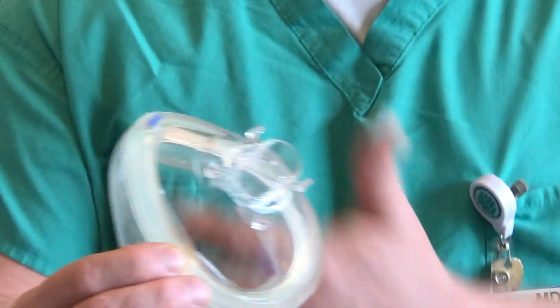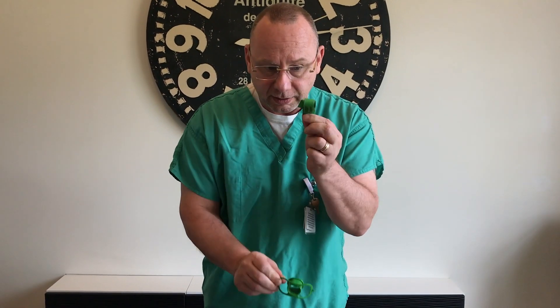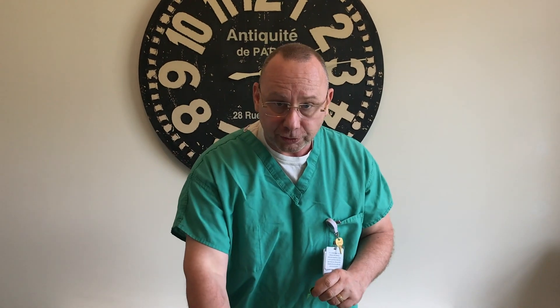The good news is you don't have to make anything. It's already pre-fitted to do everything that you need. How do you hold it to your face? Go down to your endoscopy department and you'll have these things. These are bite blocks that they use, and inside the bite blocks wrapped just like this are these little rubber latex straps. This is what you're going to strap it to your face with. You're going to need two of these per mask, otherwise it won't hold — it won't stay on.